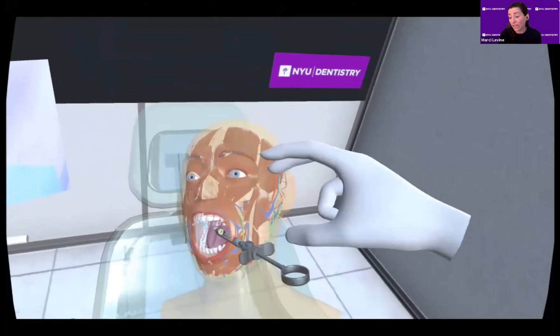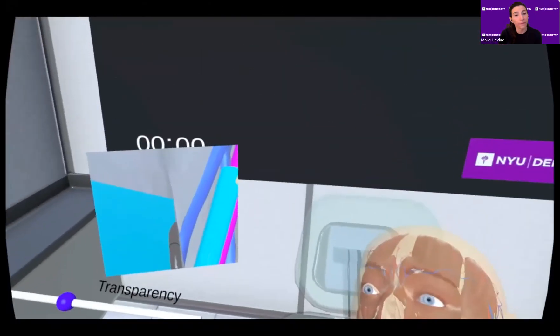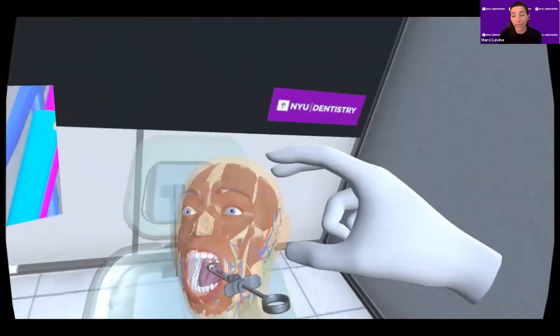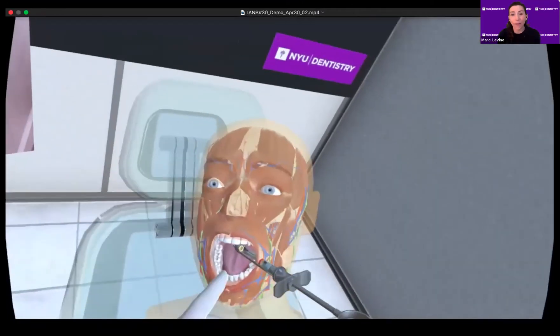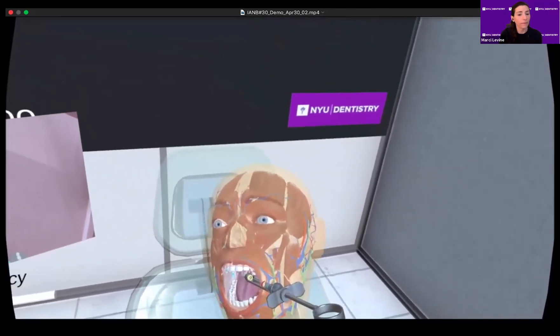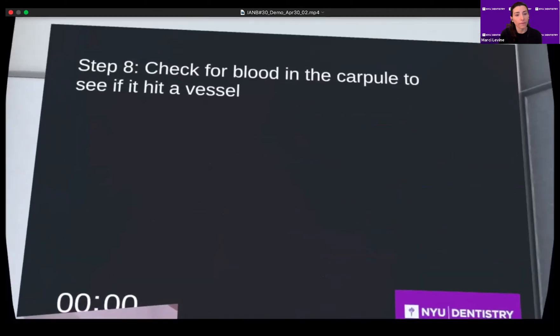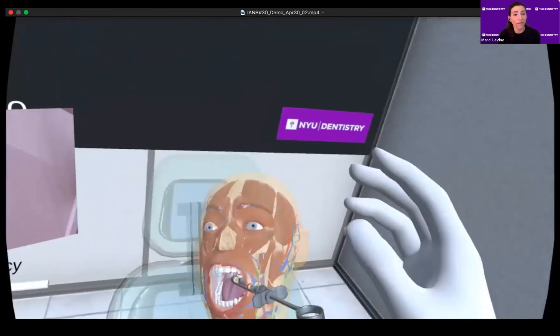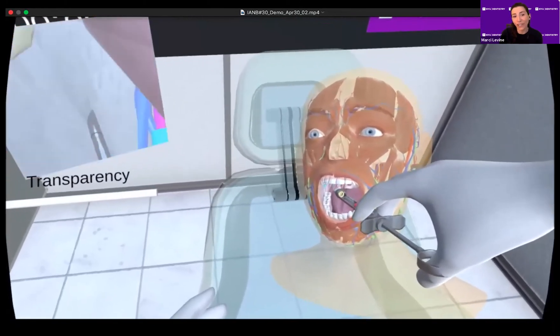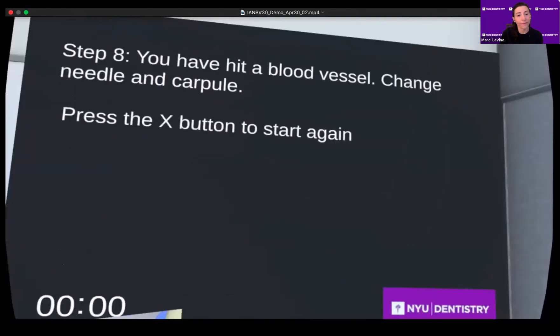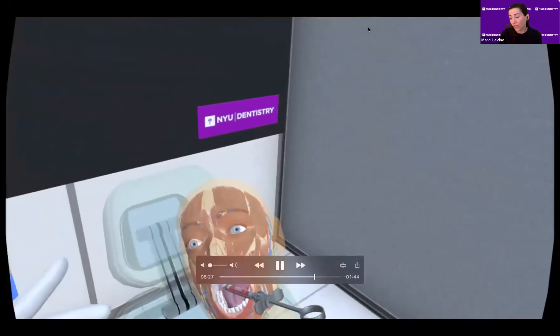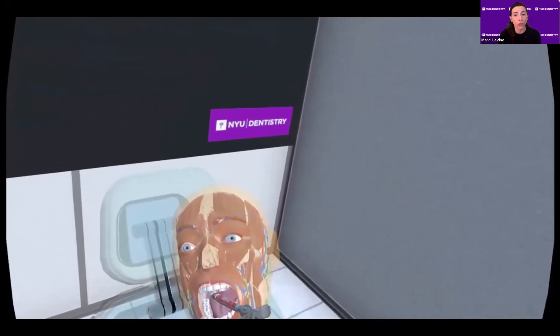Students receive feedback when the needle contacts the ramus. The module also walks through the technique of aspiration and shows what happens when an aspiration is negative, and will demonstrate here when it is positive. Following the instructions and using the visual feedback, the student can identify where the syringe and needle are located. Here the student will intentionally try to harpoon a vessel. A warning appears that the aspiration is positive and the carpule is now red. When this happens, the student is warned about the error and is asked to repeat the procedure with a new needle and a new carpule.